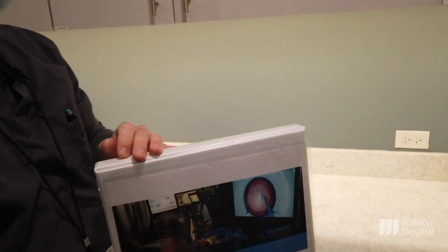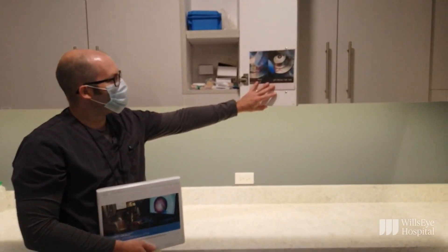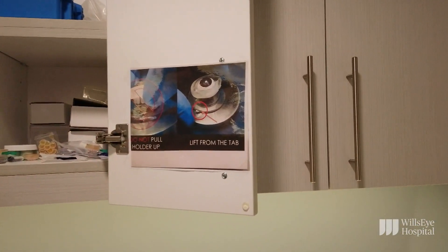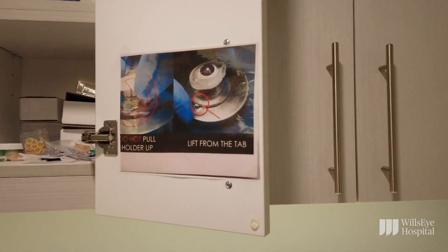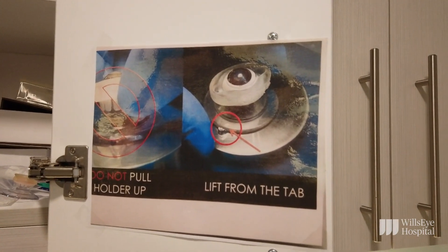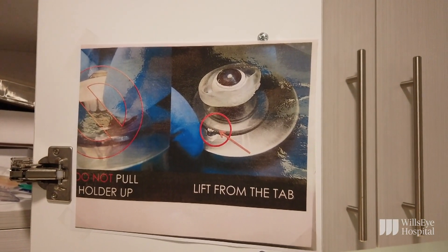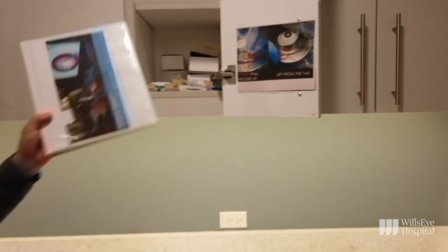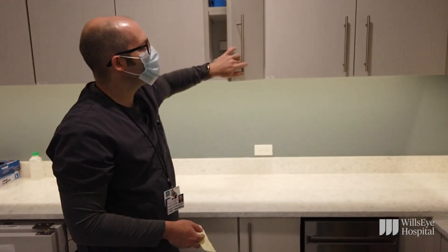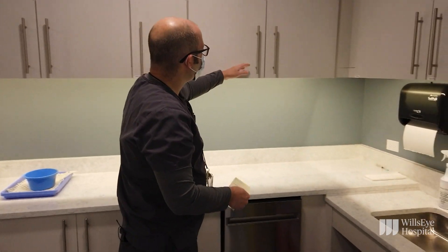Please remember when using and disassembling these devices, you want to lift from the tab on the suction cup — you can suction cup it down to your workspace. Don't lift from the actual holder, because otherwise you'll damage the device.